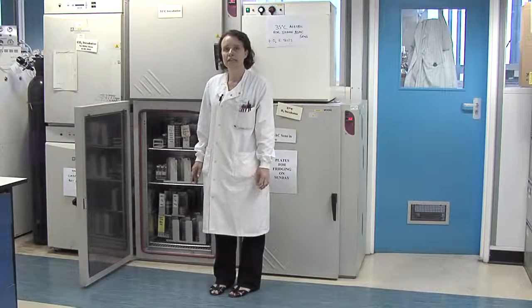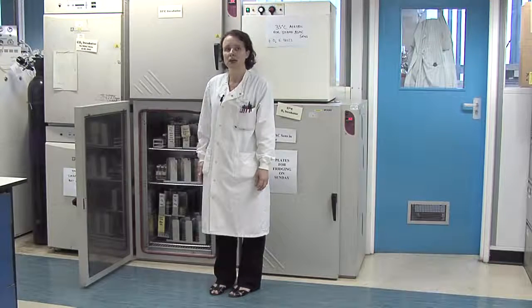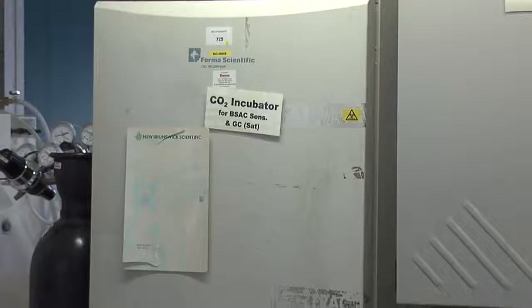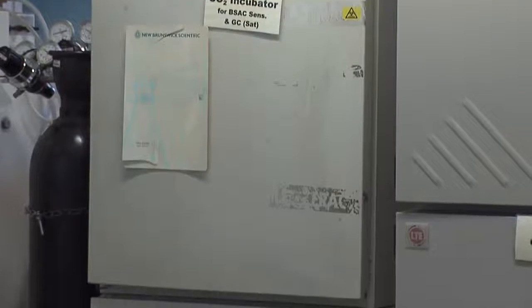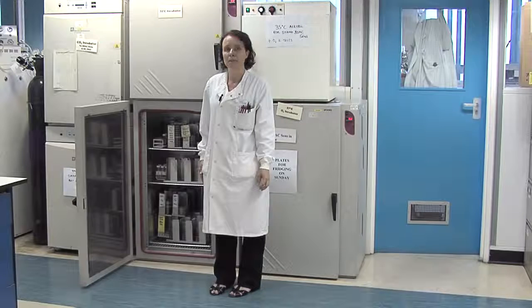After culturing, we need to incubate the plates to grow the bacteria. Some bacteria like to grow in oxygen and at a temperature of 37. Other bacteria like to grow in a carbon dioxide atmosphere, and we have incubators that have CO2 that consistently flush through the incubator. And specific bacteria are what we call anaerobic, and they grow without oxygen, and therefore we use an anaerobic incubator which has the oxygen replaced with a hydrogen and nitrogen gas mixture.